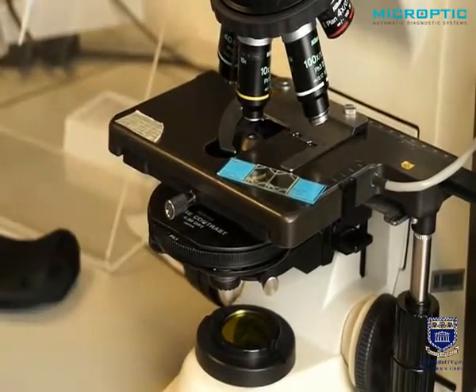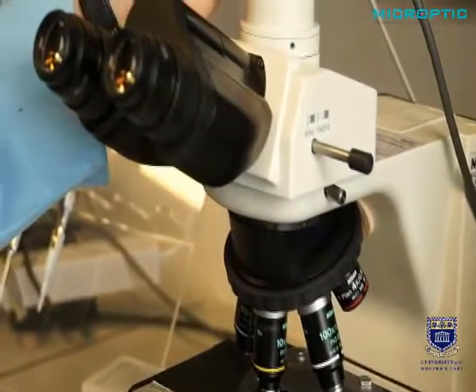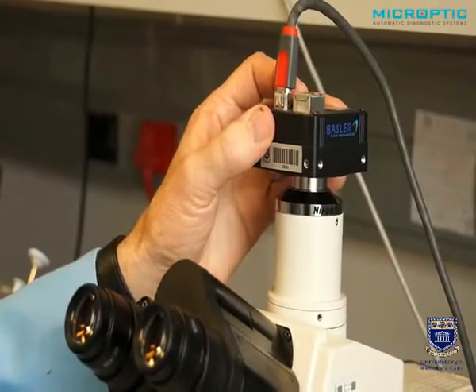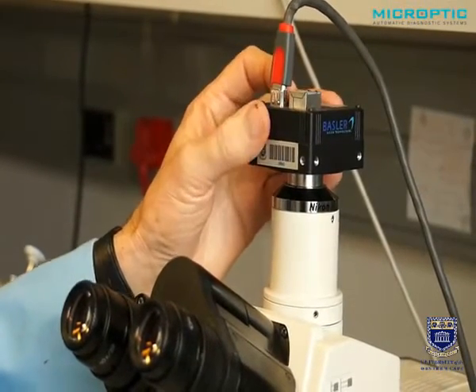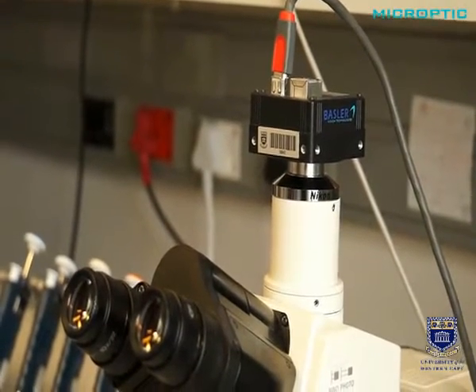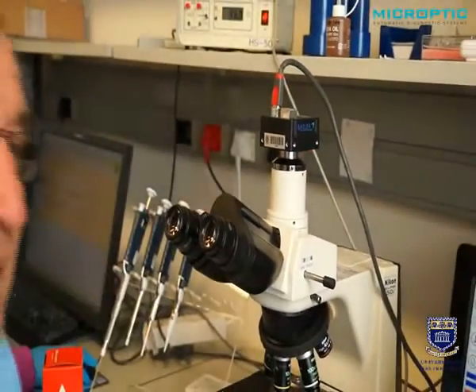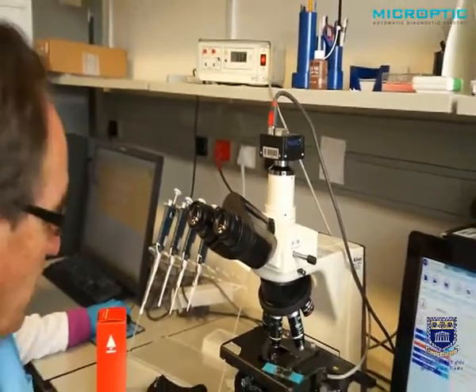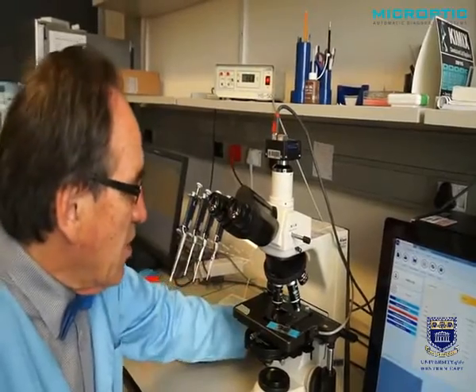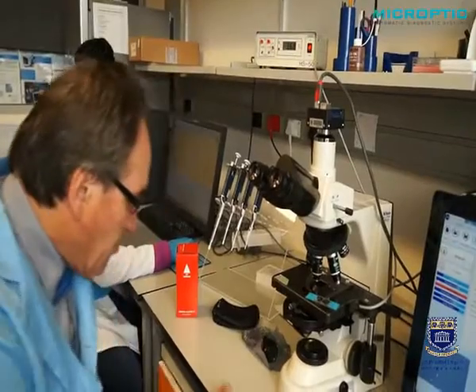The next step is that you require a really good camera with a sufficiently fast frame rate. Commonly we work with frame rates of 25 frames per second for most human work, but for hyperactivation studies of human sperm or sperm cervical mucus penetration, we need to work at least at 50 frames per second. There are a whole range of these fast frame rate cameras. They can go up to 100 frames per second.